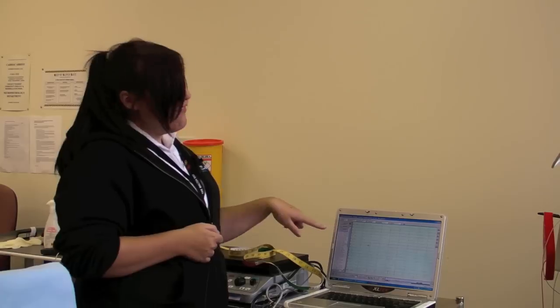So this wave measures at 11 Hz. 8 to 12 Hz frequency is alpha rhythm which is a normal frequency that we expect to see in most adults.